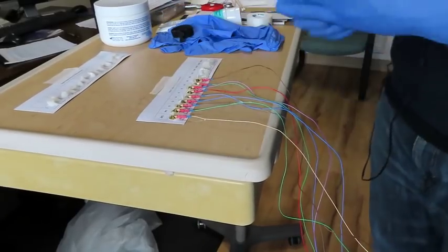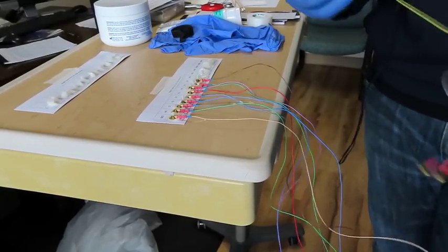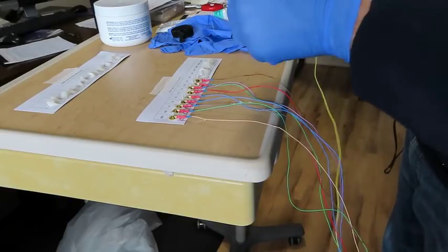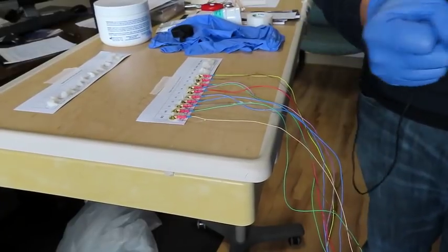Depending on your lab, you may have different inputs. You may not have as many wires. You may not need as many of those inputs that you see there on the palette here, but at least you can preset everything, pre-organize. And again, you've already got everything together.